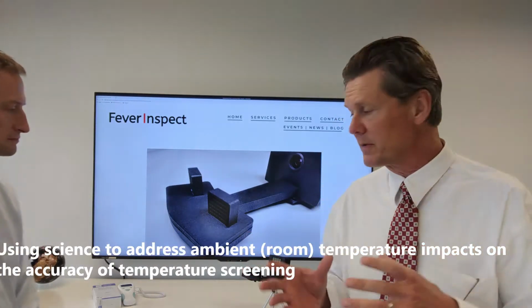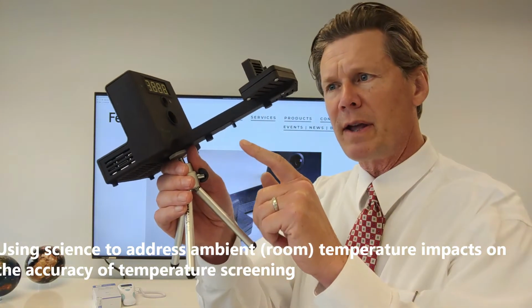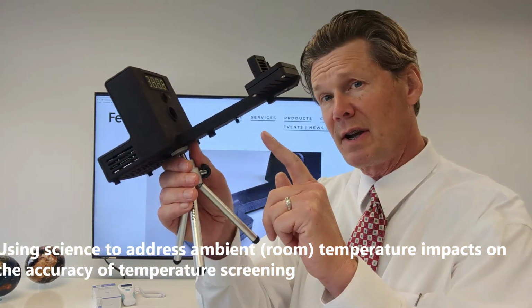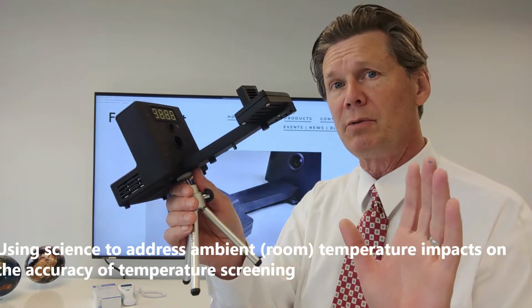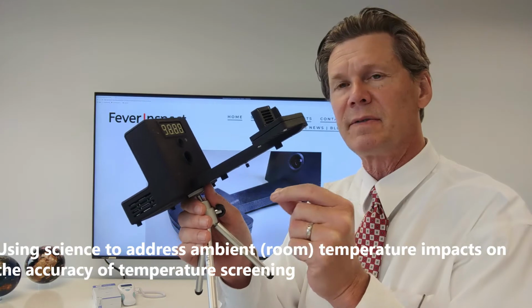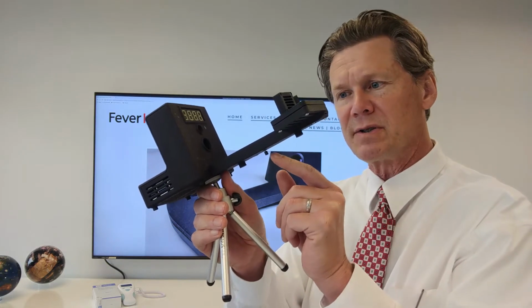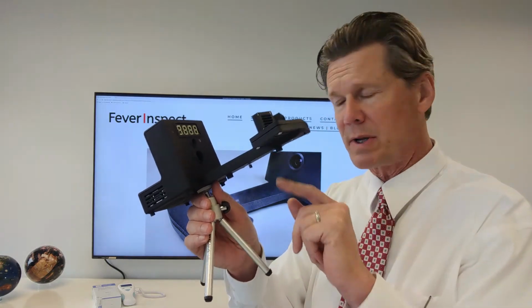So I'm going to turn it over to Eric in a second, but I want to show you that we account for that. We have an ambient room temperature sensor here, and as far as we know, we're the only company that does this and accounts for what is a very significant safety aspect for detecting fevers, which is to make sure that you account for the room temperature.